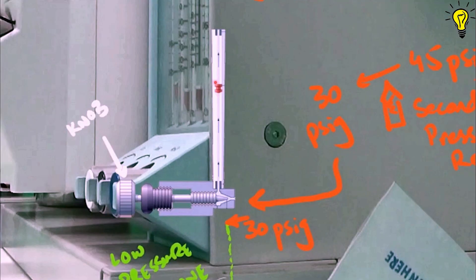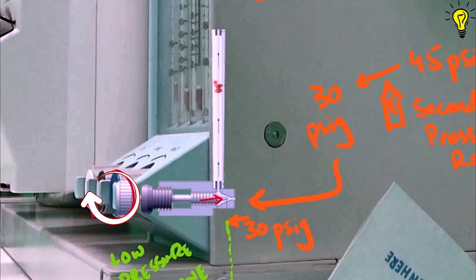The components of flow meter valve include the knob which controls the valve position respective to the valve seat. If we turn the knob counterclockwise, the valve moves away from the seat thus opening the orifice for gas to enter. Clockwise rotation of the knob results in valve closure and blocking any inlet gas from entering.